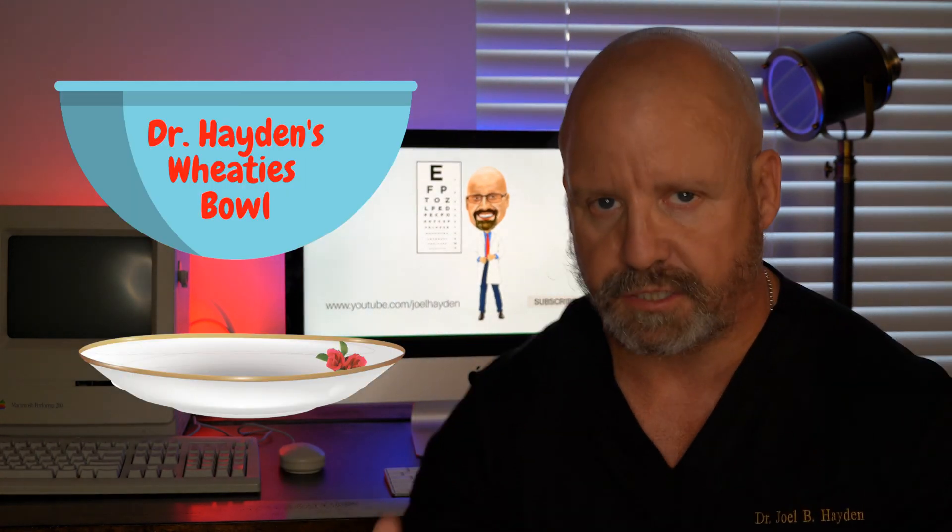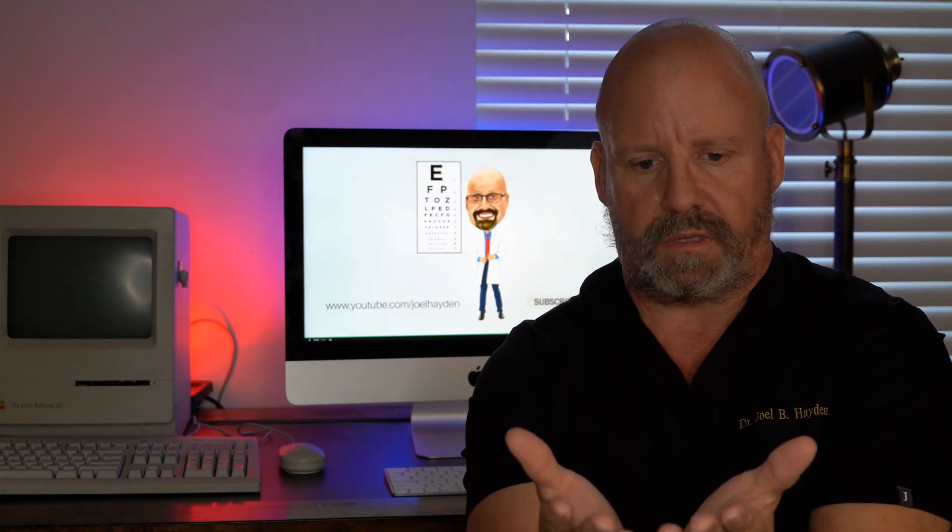But if you question it, flip it the other way, and it shouldn't come up nearly vertical on the side — it will veer out and almost look saucer-shaped. The saucer shape tends to be lower and flatter, versus the higher vertical-edge bowl, which is deeper than the shallow inside-out lens.